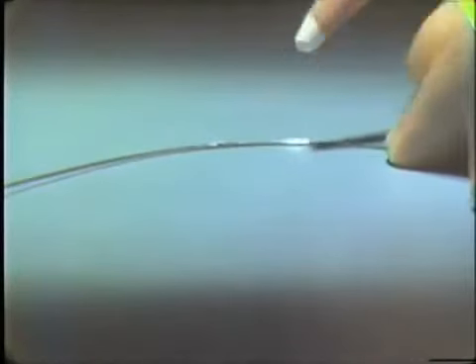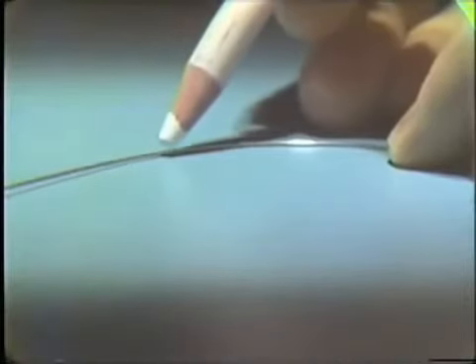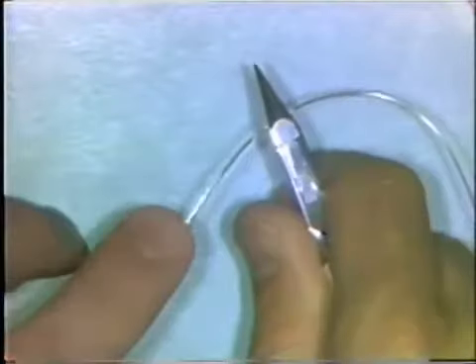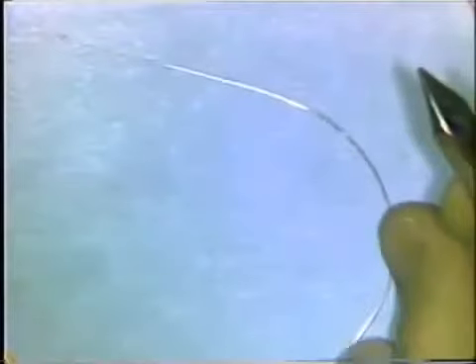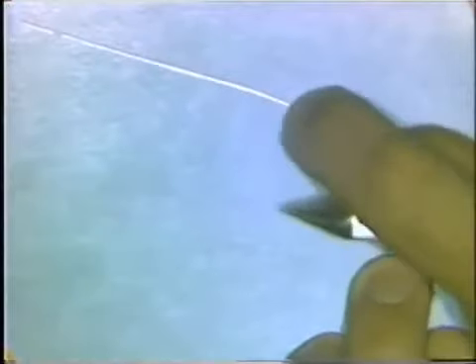What has happened is that the adjustment has moved the spot where the wire leaves the table down a bit. You mark the wire again and place it back in the beaks of the plier and make a small downward bend to adapt the wire to the tabletop surface. You continue making these adjustments until the curvature is completely flat and completely adapts to the formica surface or the glass slab.